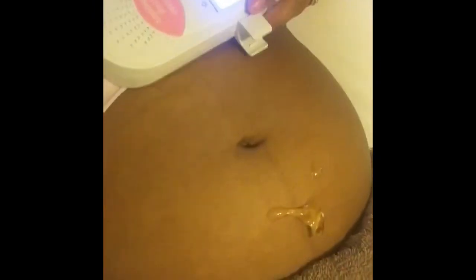I already put my little rag down and I'm going to put a little gel on my belly — just a little bit, I think that's enough. Then I grab my monitor right here, turn it on, and I'm going to put it right here on top. It's a little difficult, but then you look for your baby's heartbeat.